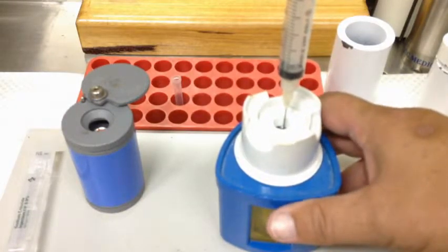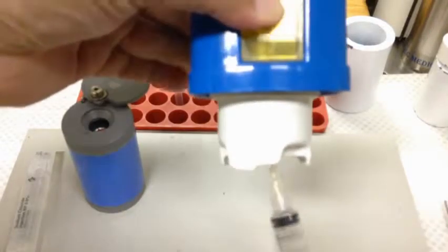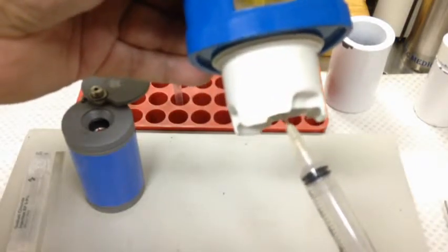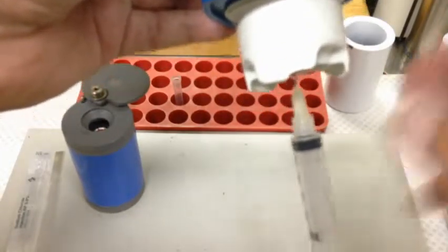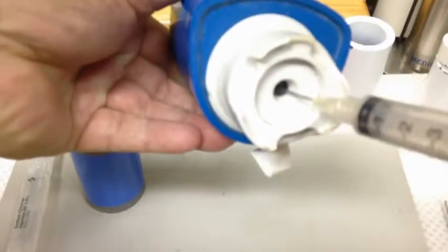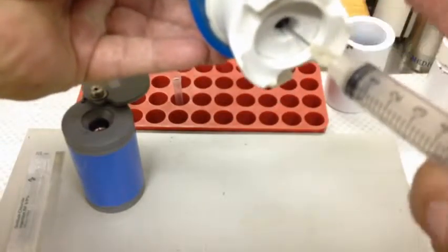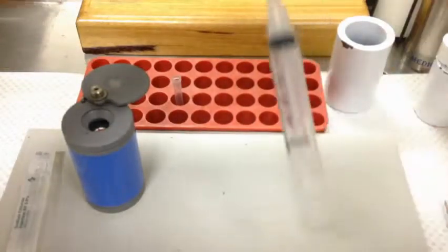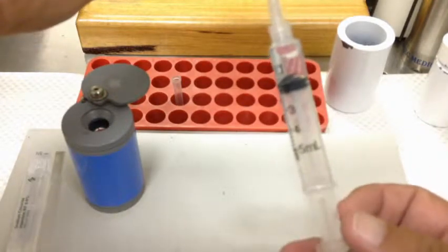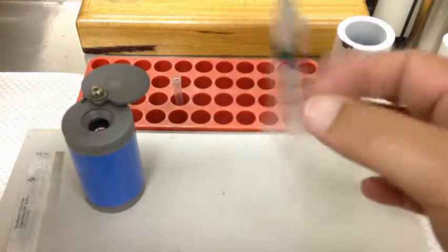This is a common mistake that people make — as people draw doses, they actually get the line of the vial and the line of the needle at angles. Sometimes it's because they can see there's only a small volume left and they're trying to get those last little drops. When you do this, it actually opens up the puncture — the septum is broken open a little bit further. Air can get in, so it decreases the stability of your product. You can also get leakage. One of the advantages of having everything nice and vertical is that it holds itself, so there's no stress. As you're drawing back, if everything's vertical and you've got a bit of an air bubble, you can flick it and the air bubble will drop to the top. And sometimes if there's still a vacuum in there, it'll actually pull that air bubble back in for you.